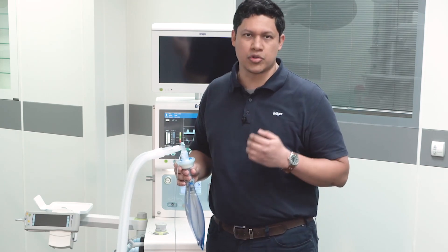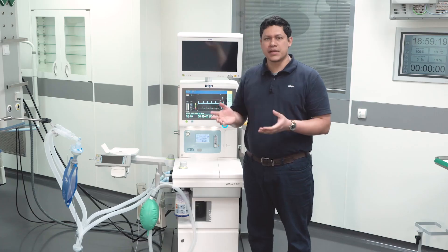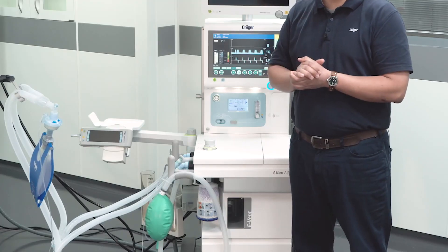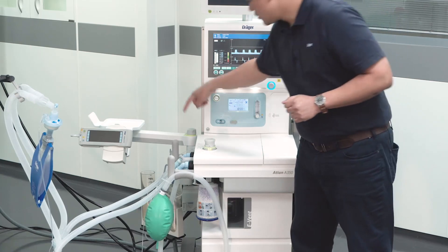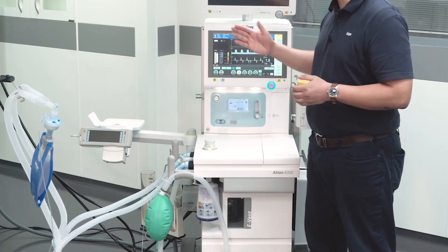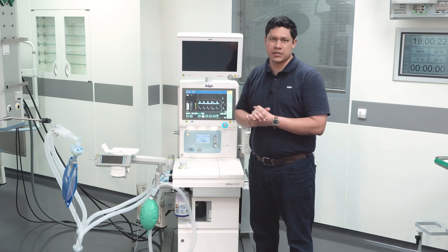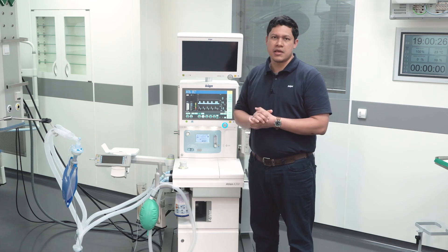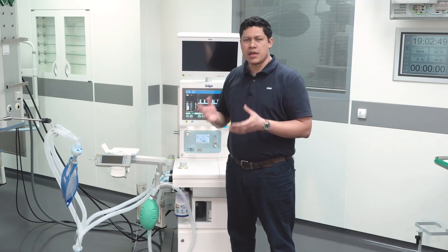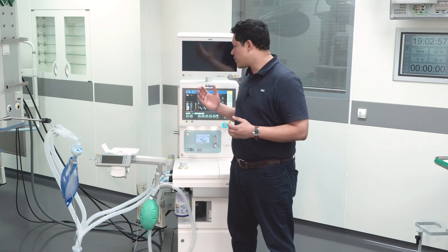When the filter is soaked or too humid, you have to exchange it. Place it in the system as close as possible to the patient. Hospital guidelines regarding infection prevention and control should always be followed. Always make sure the gas measuring cell sample line is tightly connected to the water trap and to the patient filter, as this is how gas measurement is performed. Monitor CO2 and oxygen closely, being aware that the inspired fraction of oxygen may deviate from the set fresh gas flow value due to the re-breathing system. The manual breathing bag should be fully and evenly filled and will move in synchronization with mechanical ventilation.